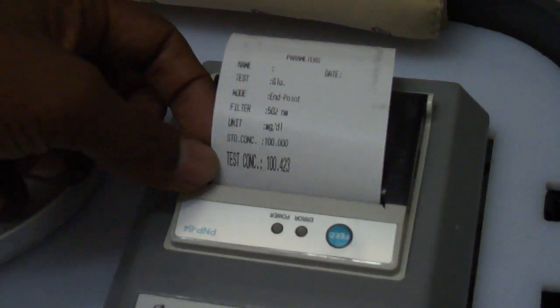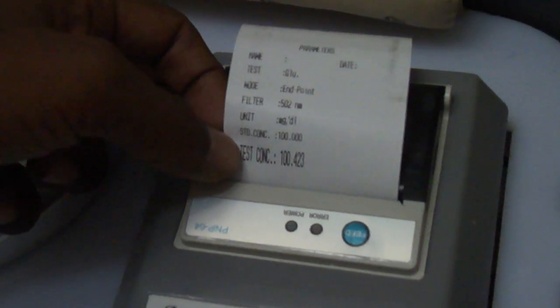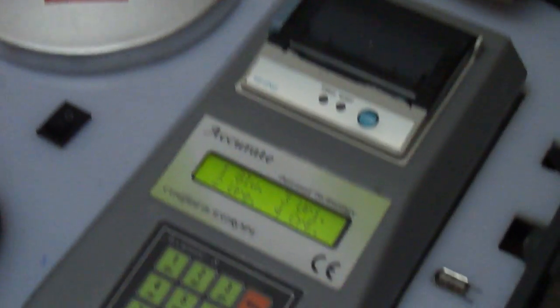The result is displayed in a printed format, showing the patient test concentration and test details mentioned in the format. That's all about the testing — you just need 3 seconds for the test procedure, with very high accuracy. Thank you.